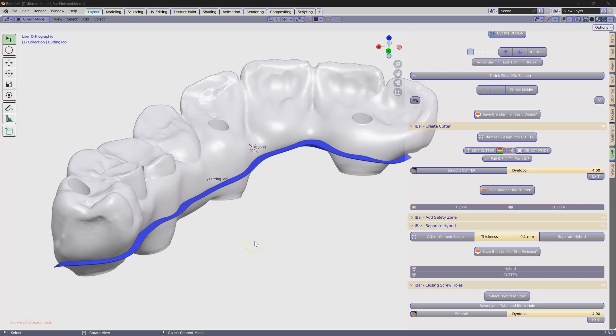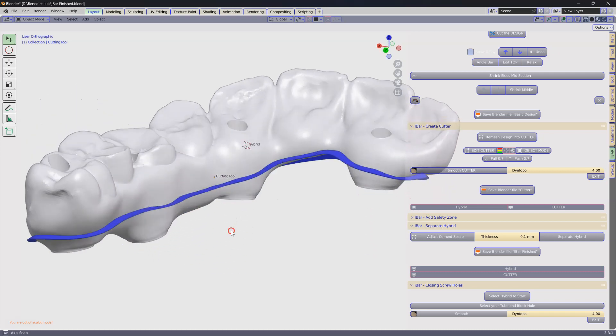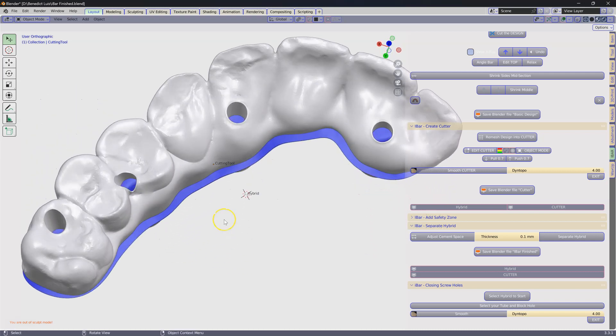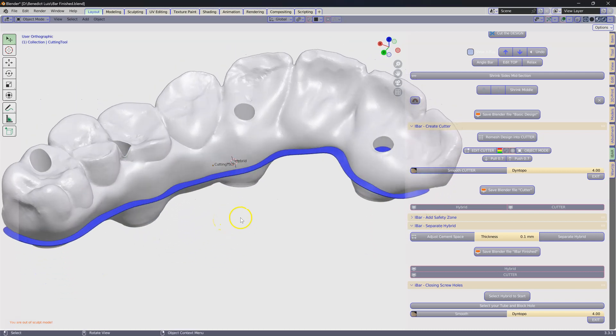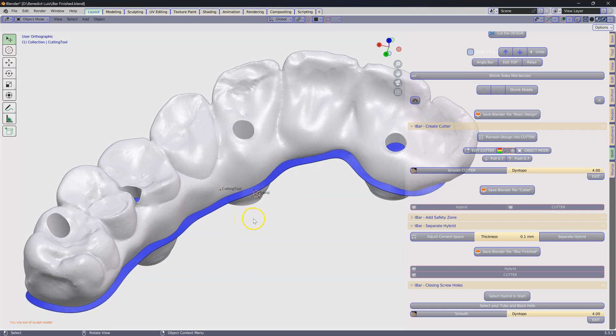Some of you have asked me how to make a temporary shell of the hybrid instead of having a permanent version. I'll just go through this very quickly and it's extremely easy to do.